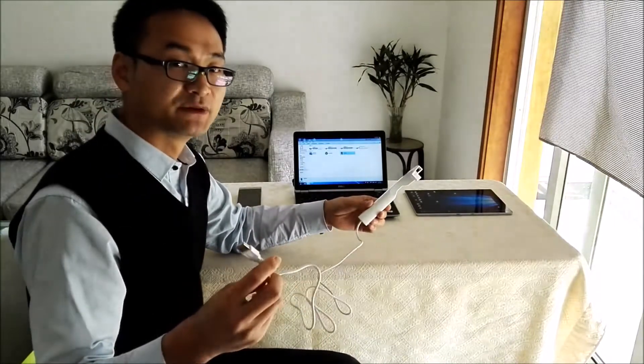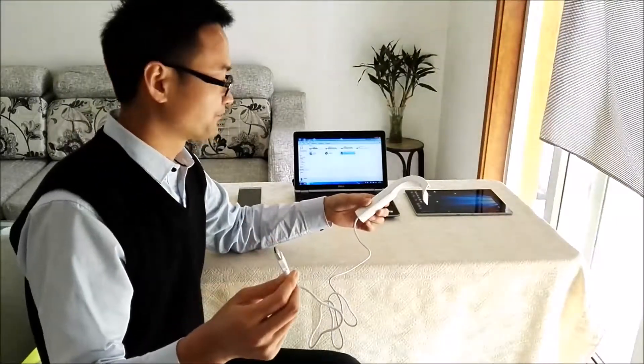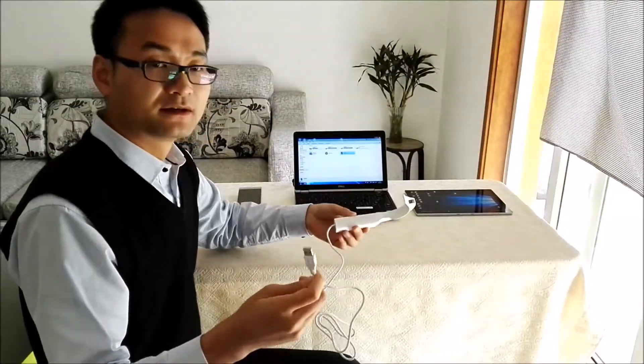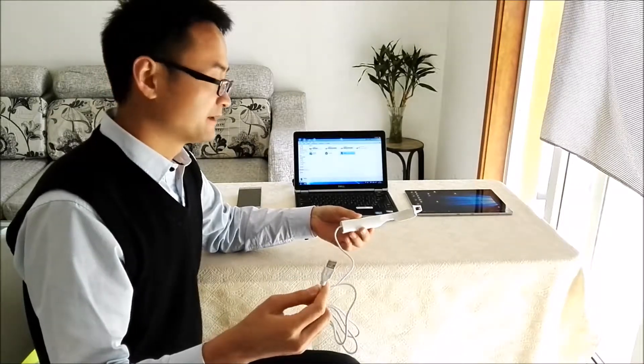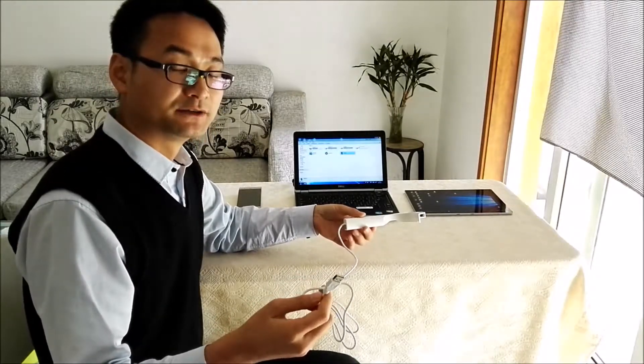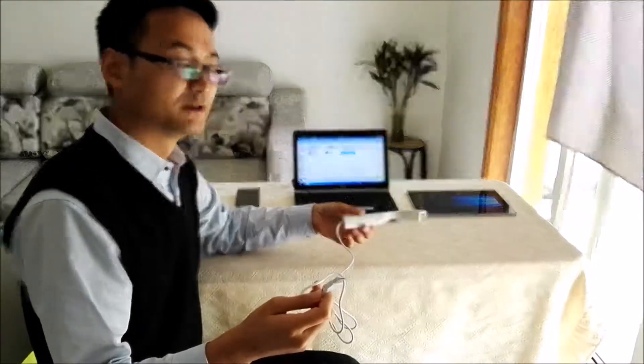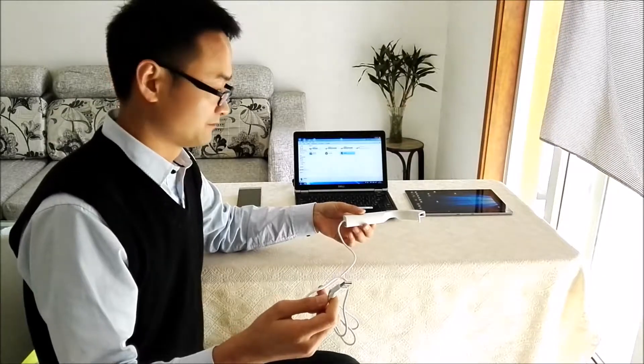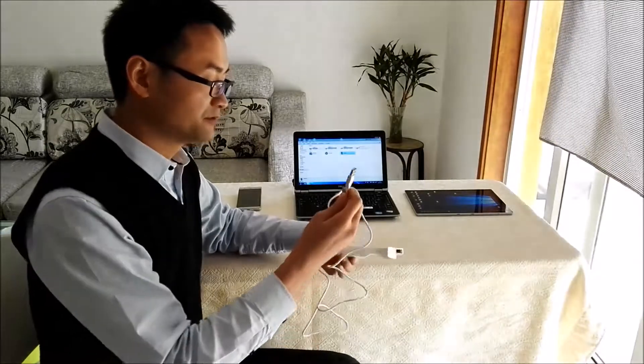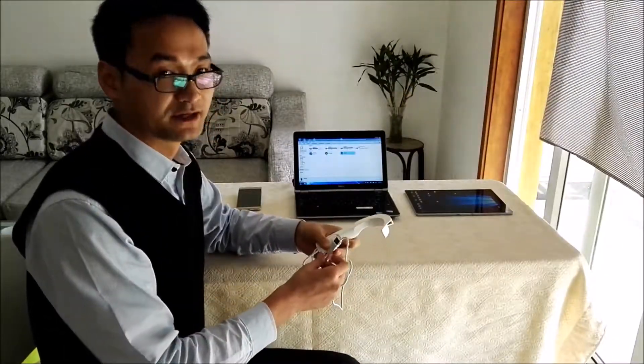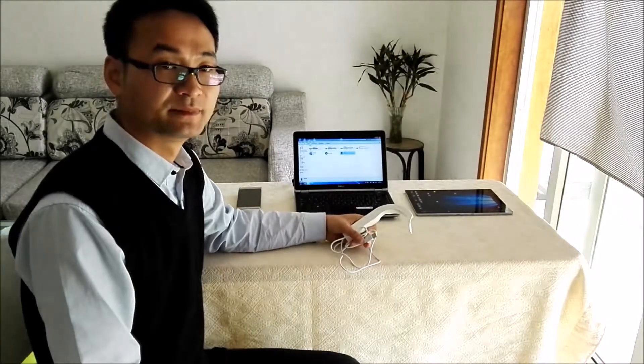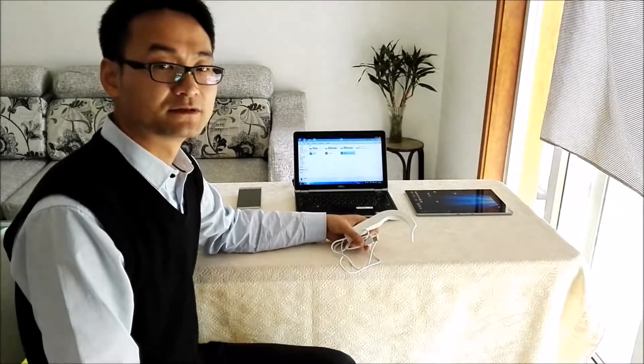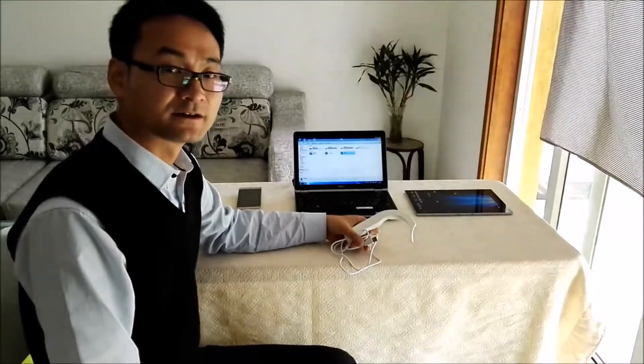This is a video laryngoscope without a screen. A video laryngoscope is very important or useful for difficult intubation, but usually a video laryngoscope costs around $2,000. It's a big money. So how to decrease the cost?